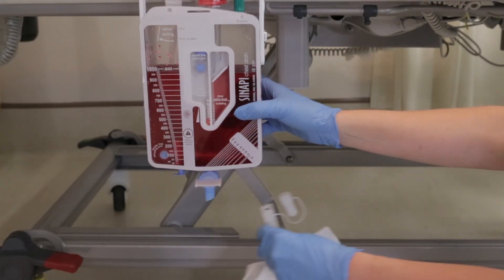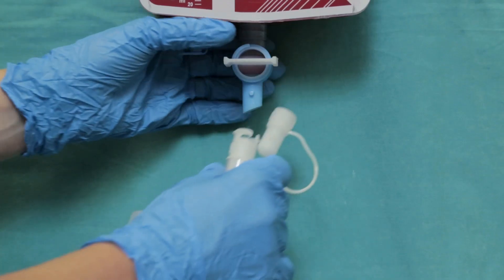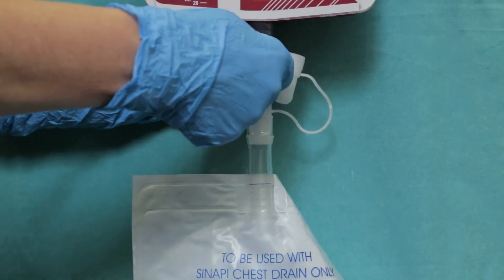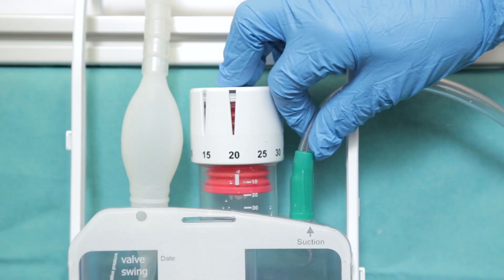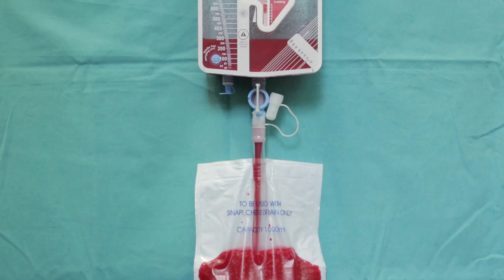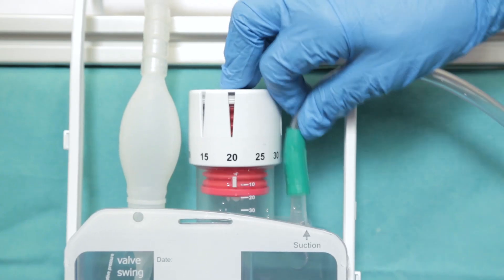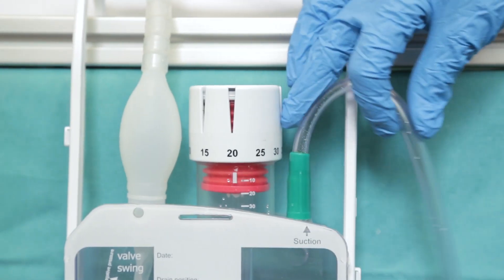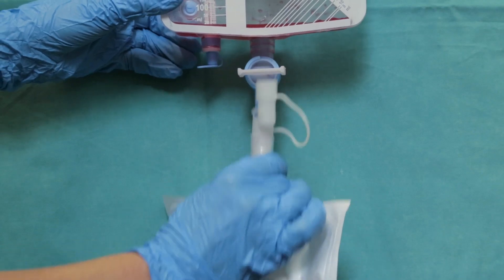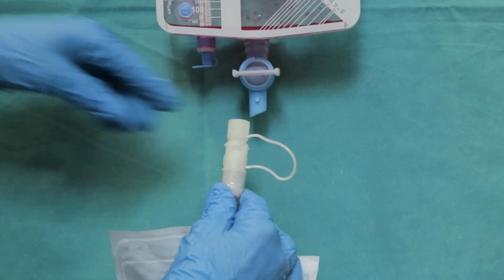Empty the device at the end of each shift or when it reaches the maximum drainage volume. Connect the disposable drainage bag to the tap and open the tap. Disconnect suction from the device or temporarily clamp the suction tubing by hand to allow free drainage. Close the tap. Reconnect suction or reset the suction regulator to the prescribed suction pressure. Disconnect the bag from the device and cap. Immediately discard the bag into a medical waste container.